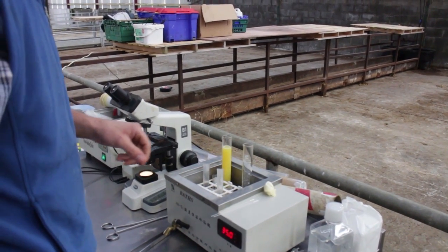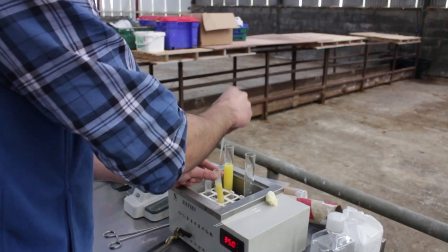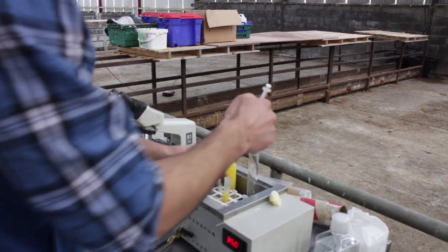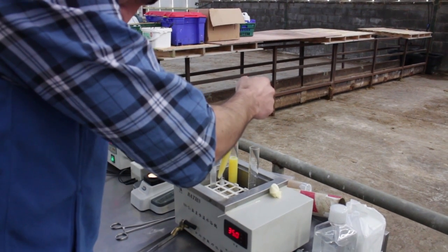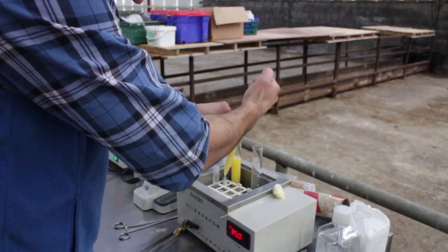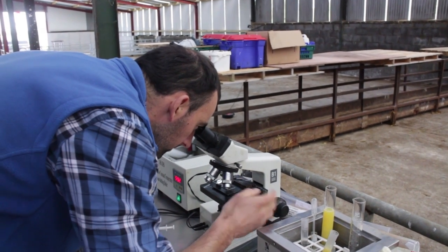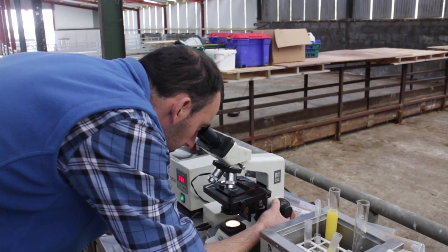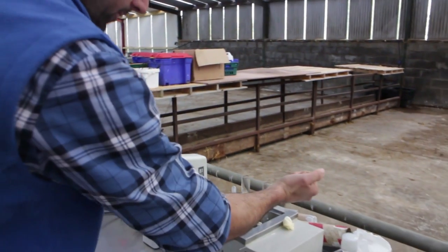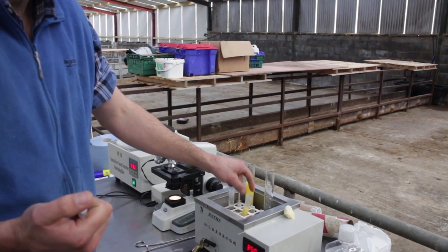We make sure the container is clean before we add anything in. It's roughly 1 to 10 dilution now. I'll check it again to see what it looks like under the microscope. I'm very happy with that — it's a really good one. Even diluted down, it's still really good quality semen. You could actually dilute it up to 15 mil, it's still quite strong, so that ram would easily do 70 to 80 ewes.